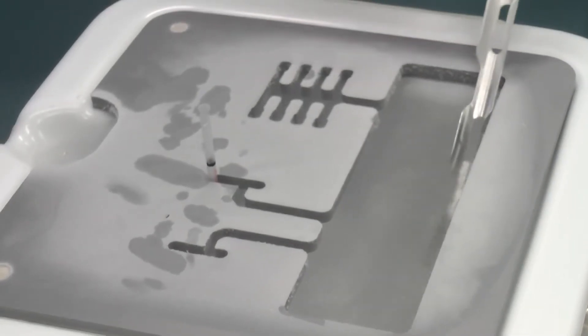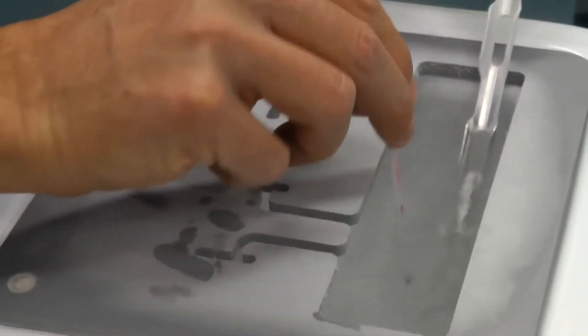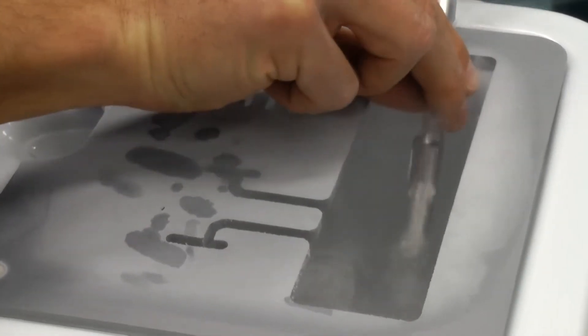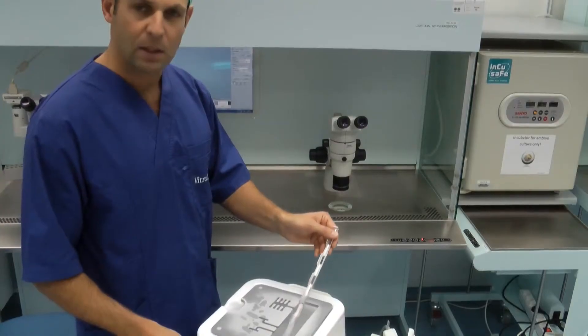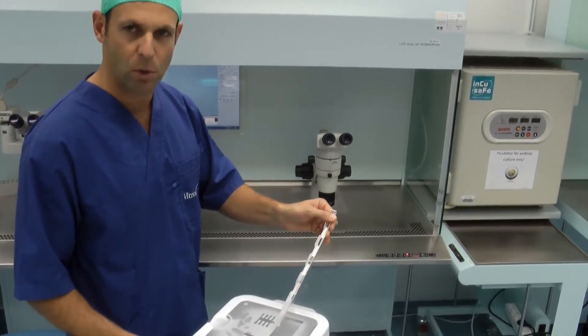Place the metal cane inside the liquid nitrogen bath and then, while keeping the straw submerged in the liquid nitrogen, move it into the goblet. From here, the cane can safely be taken to your storage tank, where the embryos can be stored according to your own protocols.